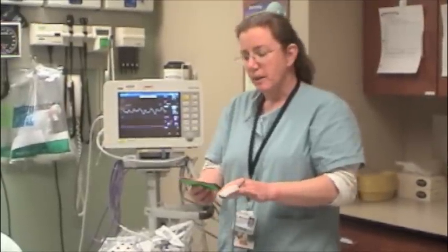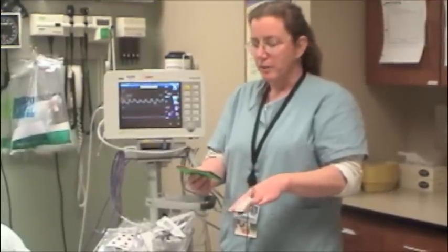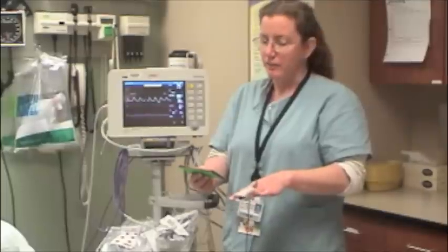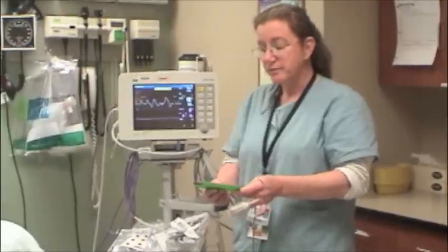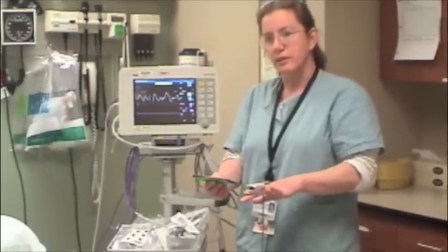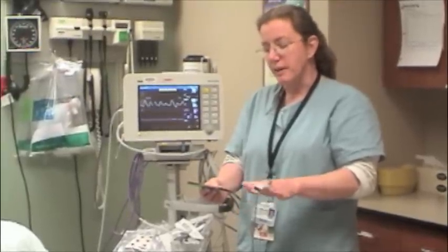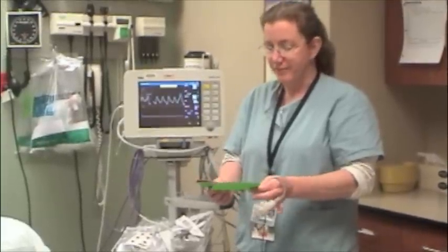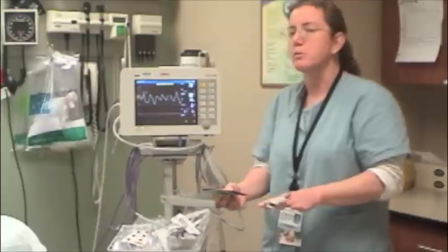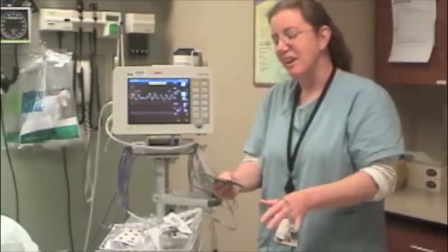For a quick primer: oxygenation is how we get oxygen into our tissues. It's inhaled into our lungs where gas exchange occurs at the capillary alveolar membrane. The O2 is then transported to the tissues by the bloodstream and measured by pulse oximetry. Ventilation is how we rid ourselves of CO2, a byproduct of the Krebs cycle. CO2 is carried back through the blood, then exhaled by the lungs via the alveoli, and capnography is what measures ventilation. The most attractive clinical difference between capnography and pulse oximetry is the rate of analysis.